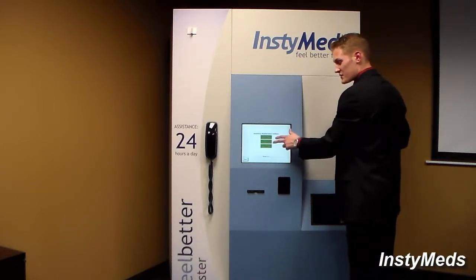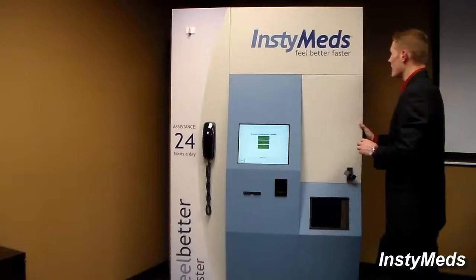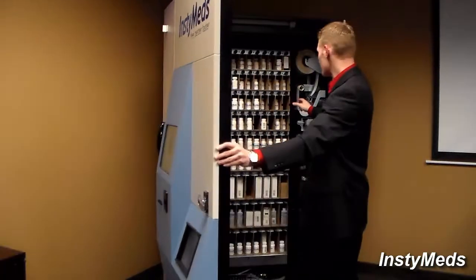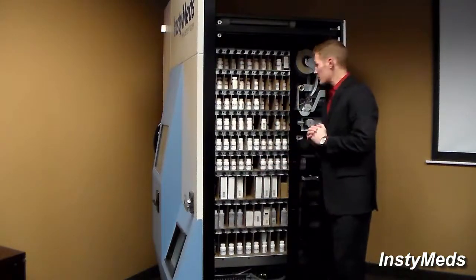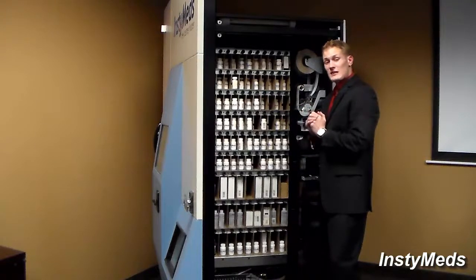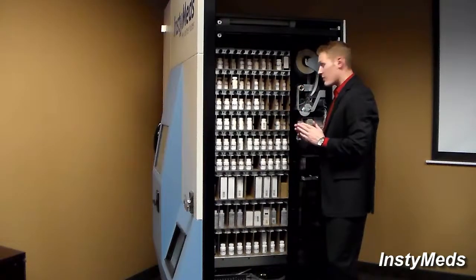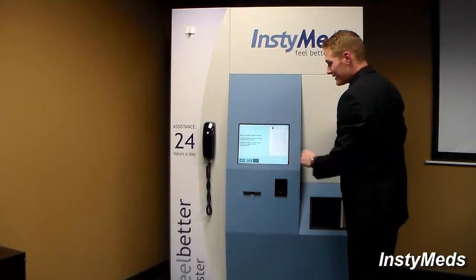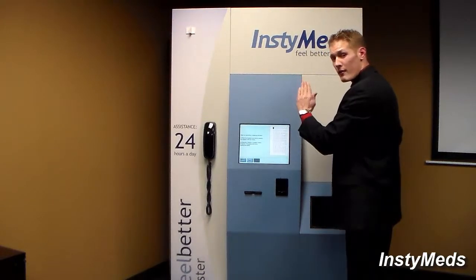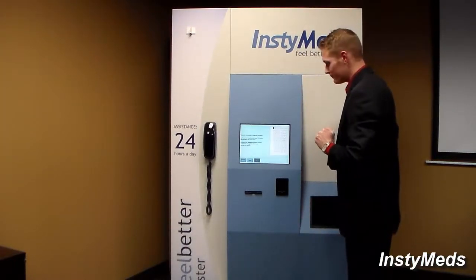There's also two other features that are listed as options. The rewind button has to do with the white paddles that are in every single section. The white paddles is what pushes the medication forward so it can fall onto the gantry. So anytime a restock report is run at the dispenser, it will automatically rewind the white paddle. If for some reason the white paddle does not rewind, you have the ability to press rewind, select the location that the paddle needs to go all the way back to, and then press rewind location, and it will automatically do it for you.